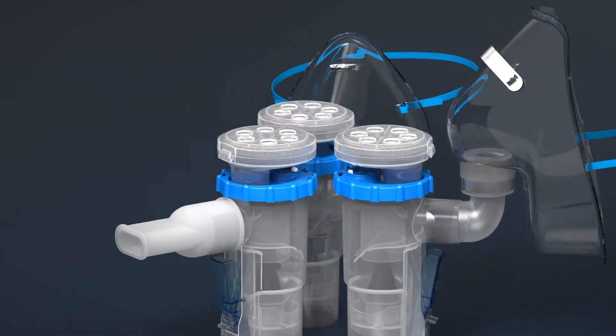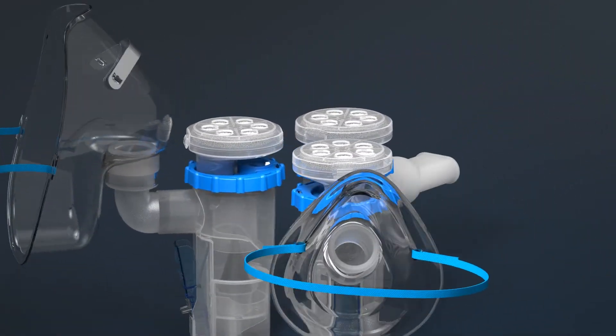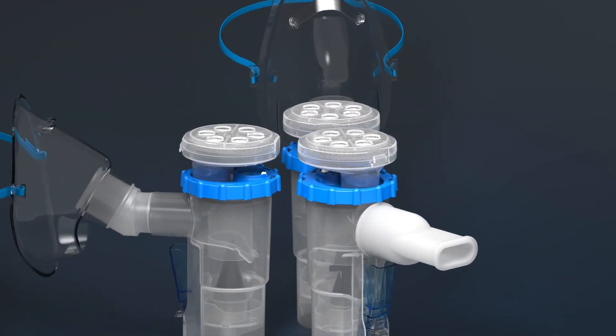Easy to use in a hospital or at home, MaxiNeb Duo is available with either a mouthpiece or a mask.